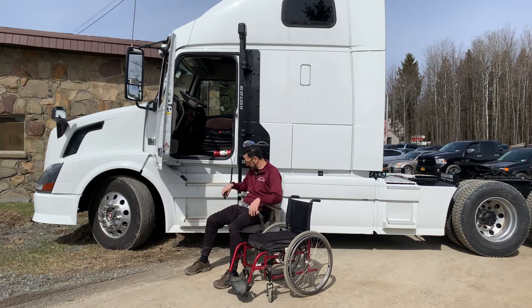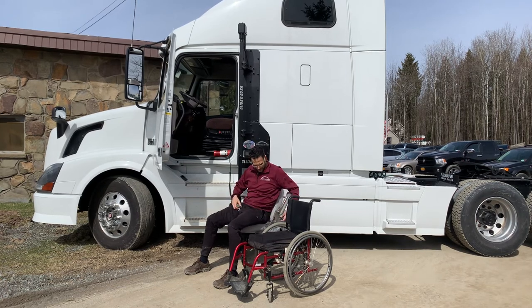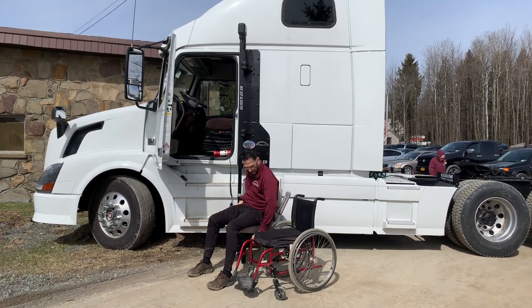So very important: we're going to line up the pin right there and we're going to lock this sucker right in place so that when we transfer over, we've got no problems. Everything's nice and easy transfer here. Lock your wheelchair.